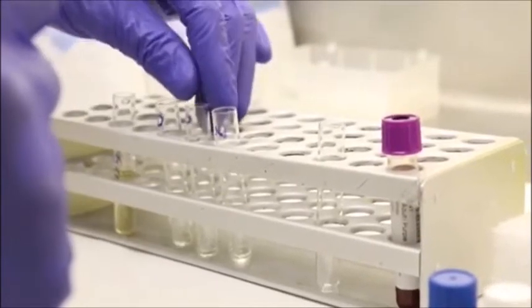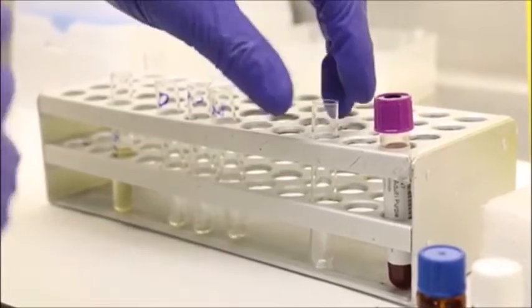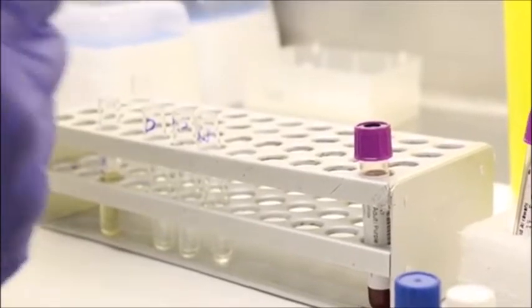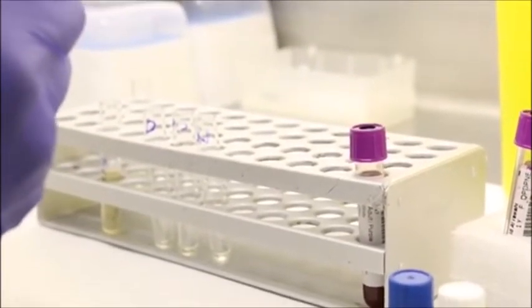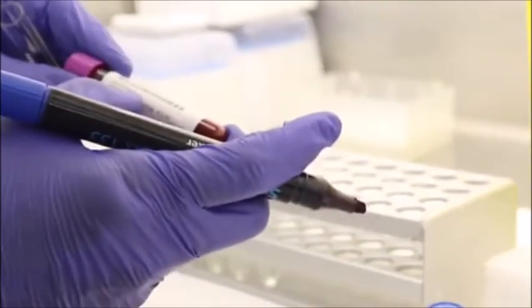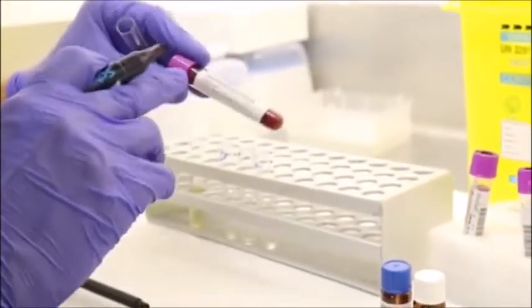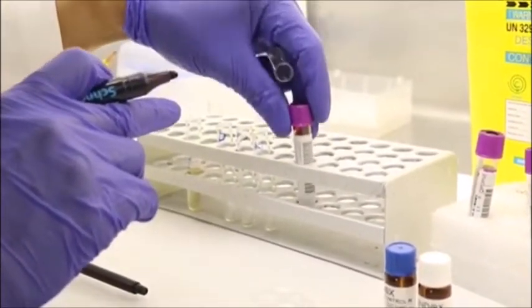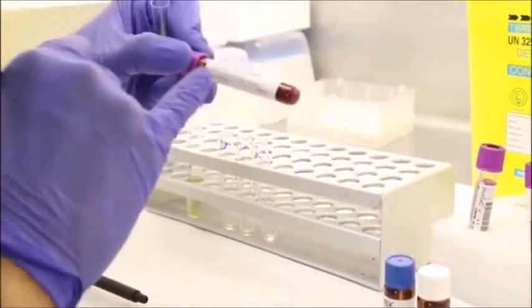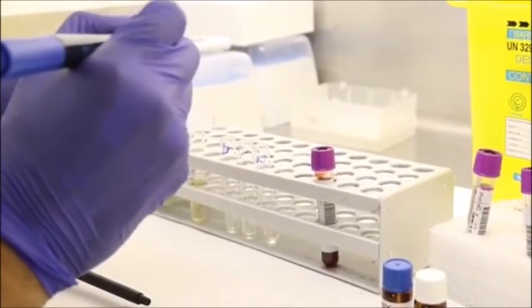So depending on each lab, they have their own protocol in labeling. So long as you can identify your tube and your controls, it is fine. Okay. So now, since all our samples are barcoded, we are getting the last 4 digits of the barcode number to label your patient sample. In this case, we have 6247 for this particular patient.